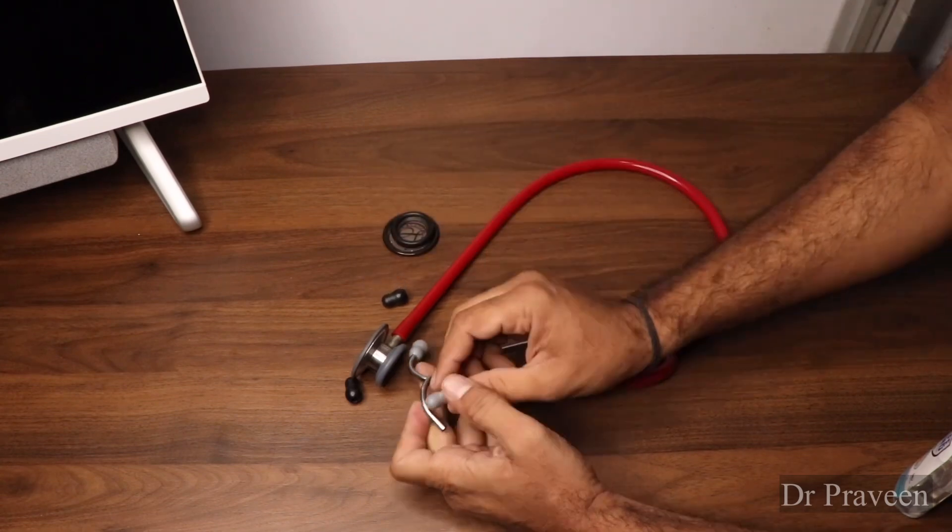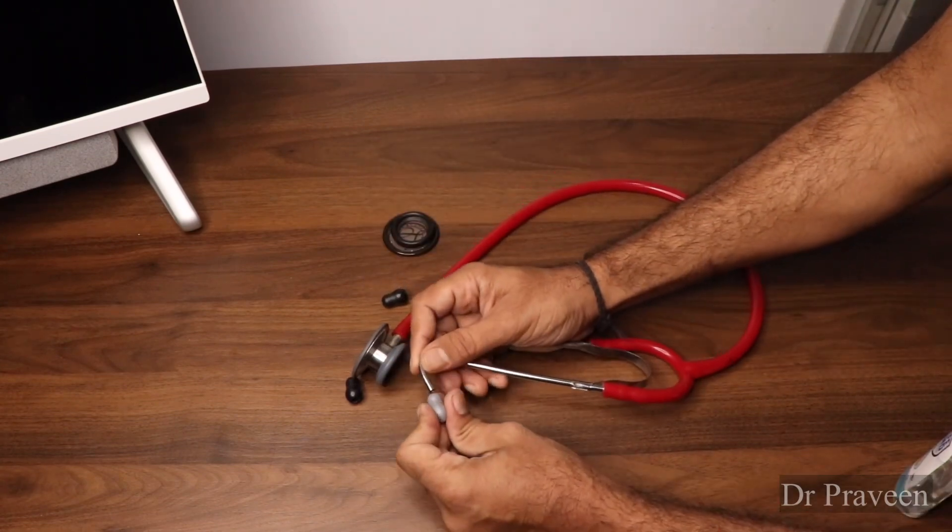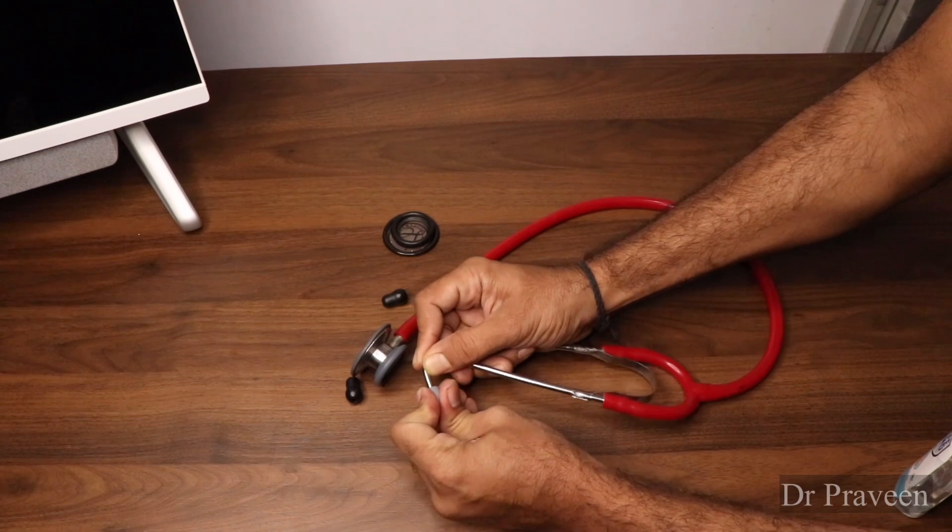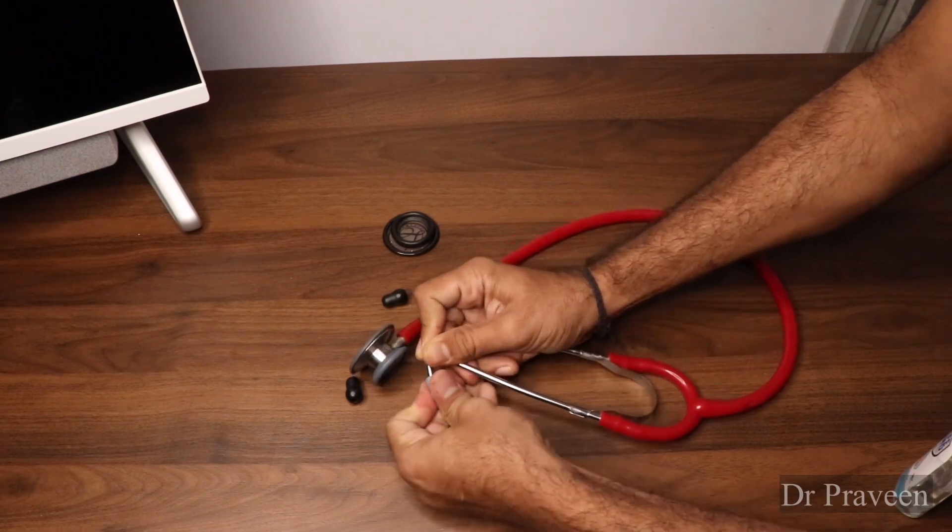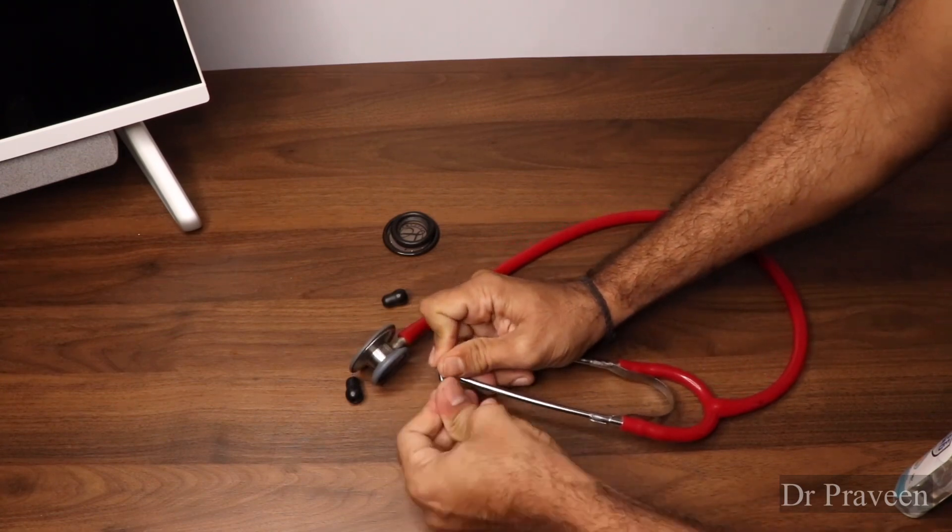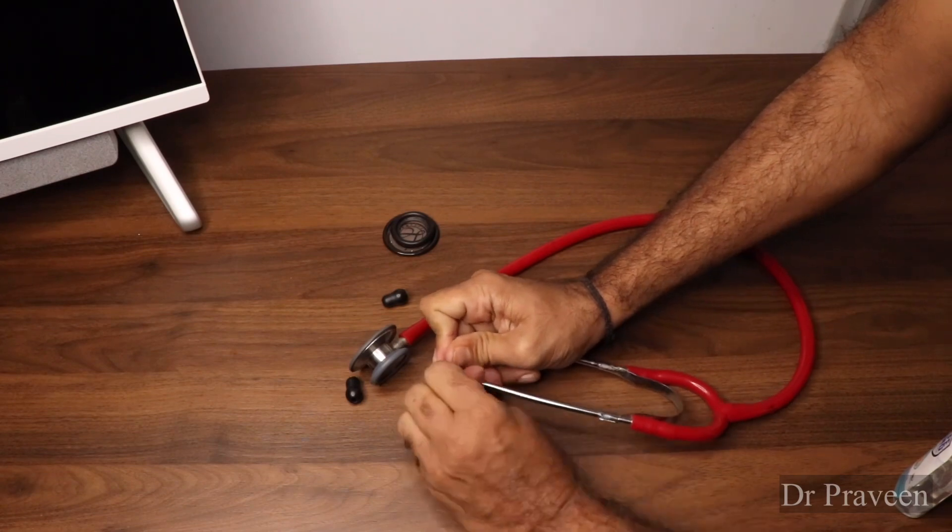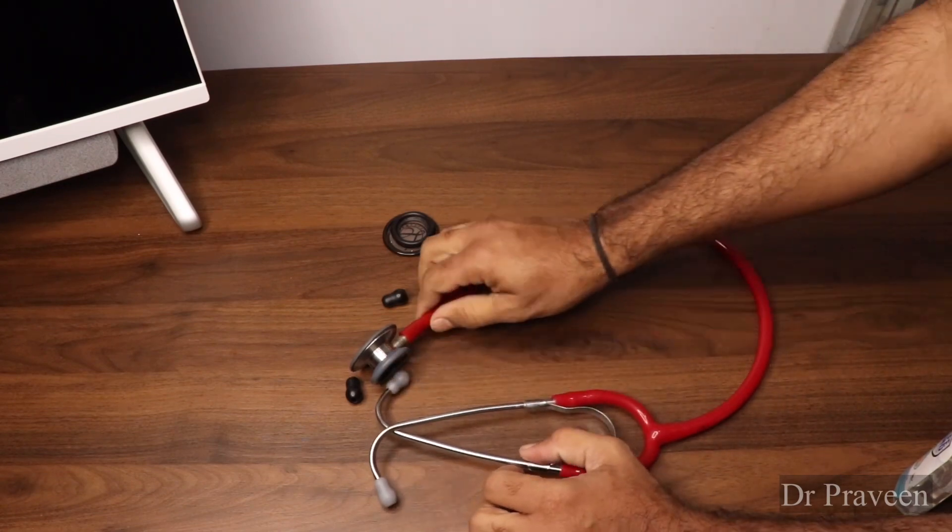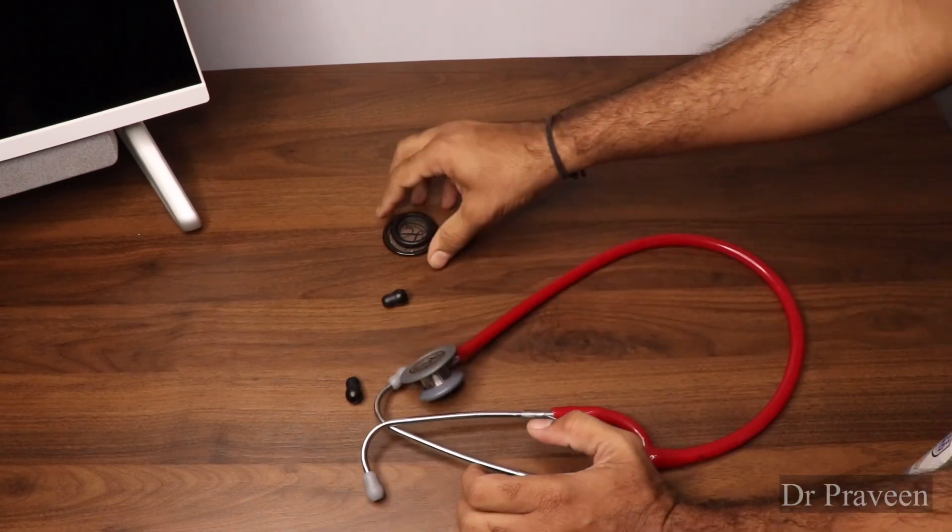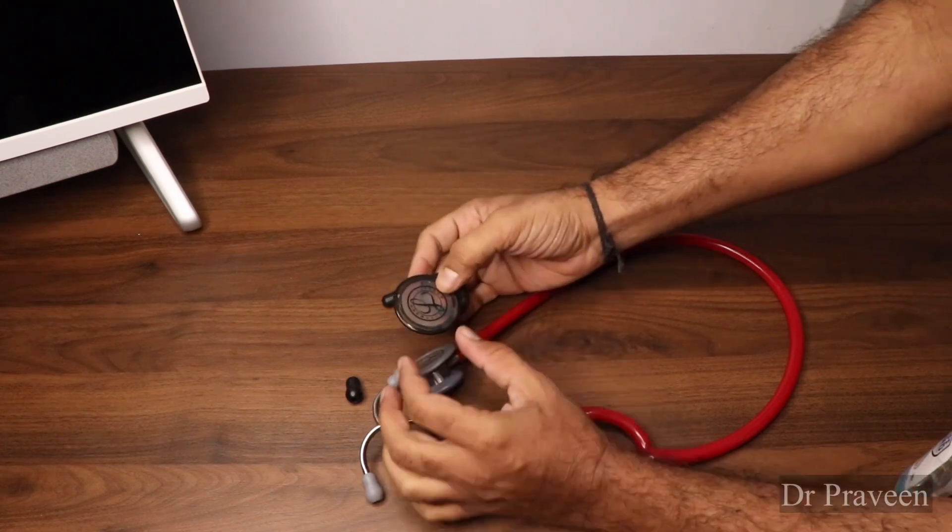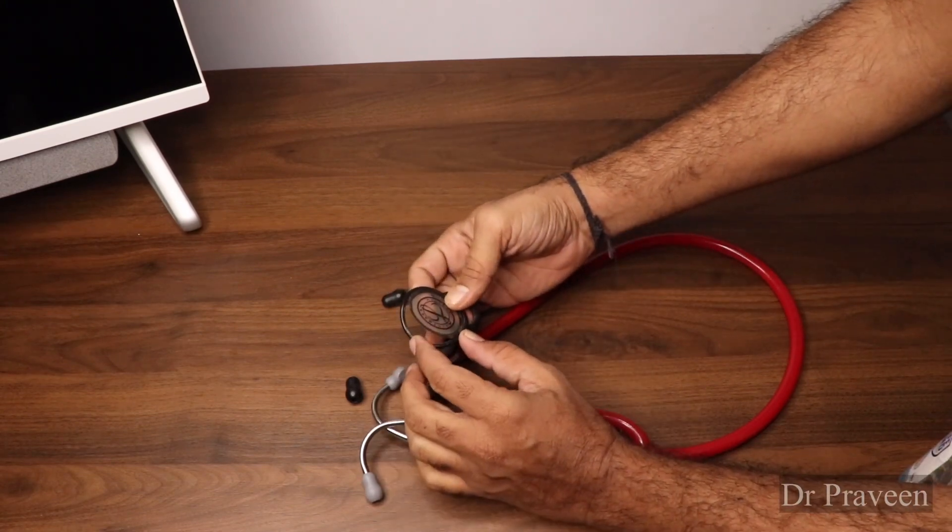Still, it has not lost its elasticity. This is the older one. Usually we get damaged at this part only.